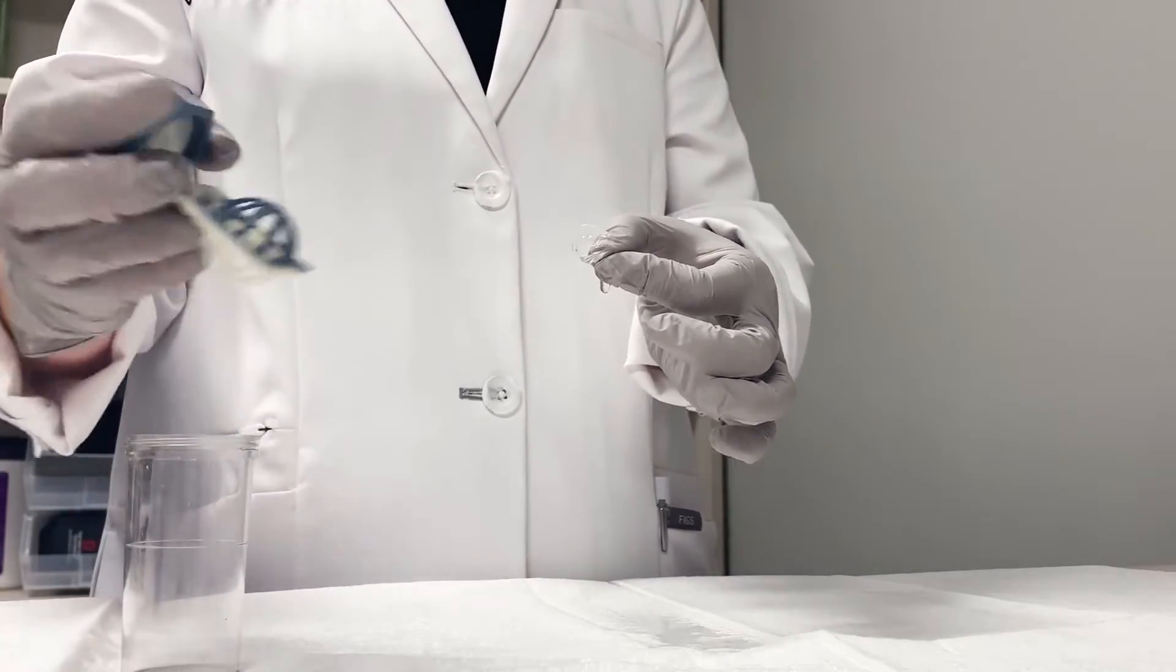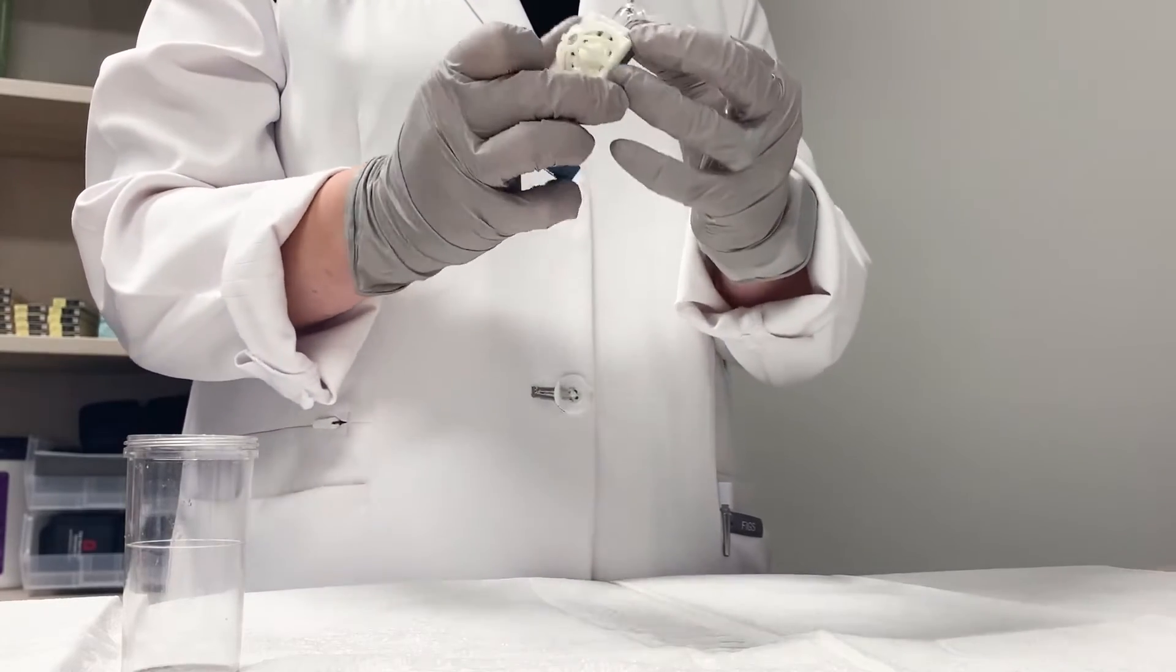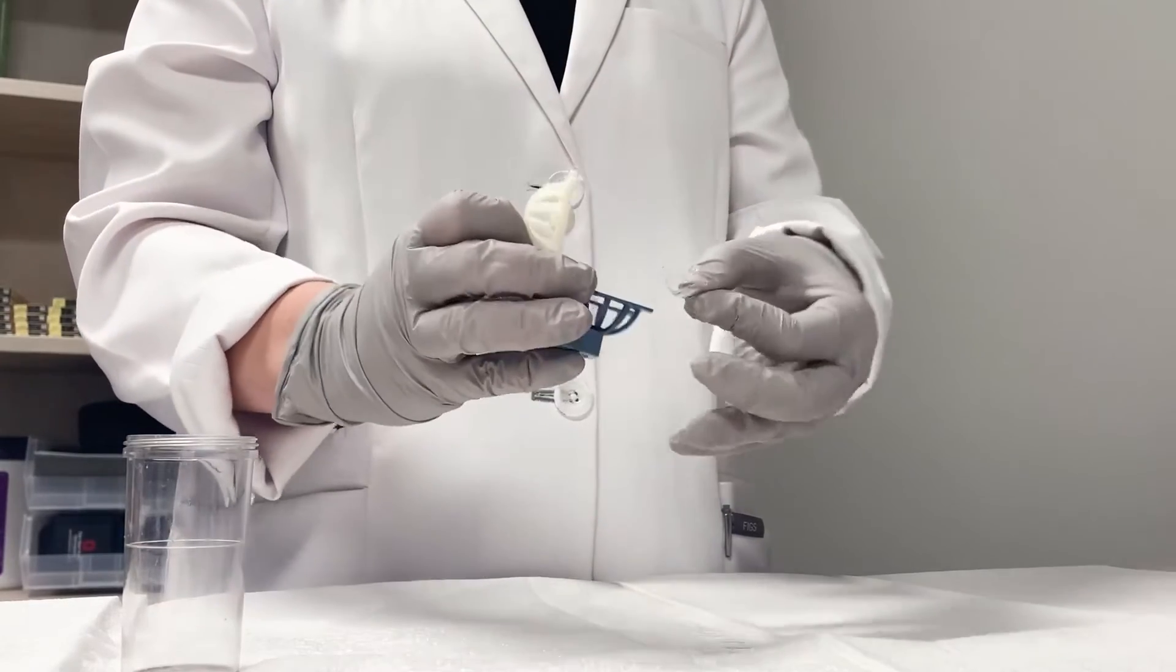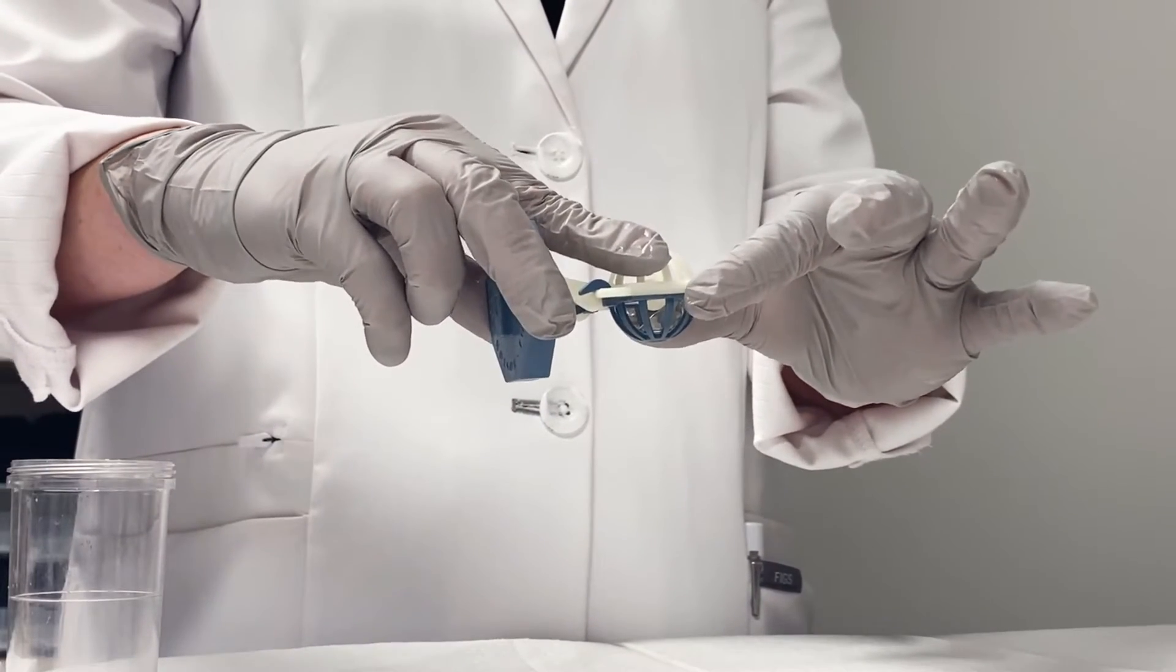After that is prepared, you're going to use the PROS disinfection case and gently open the basket and place the device into the basket. Close gently to avoid damage.